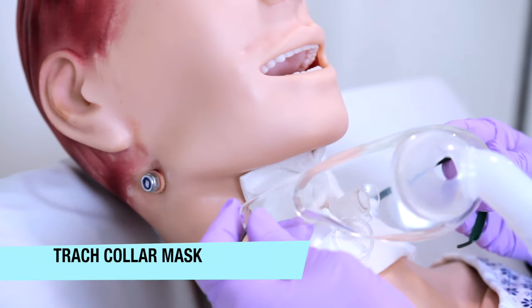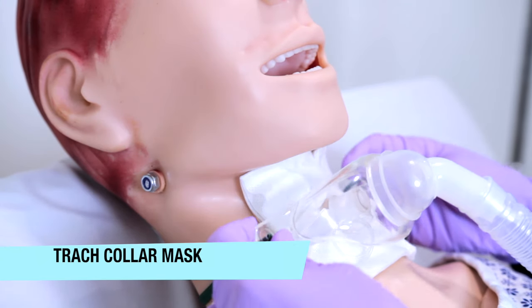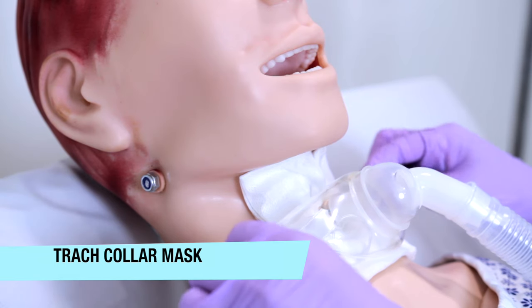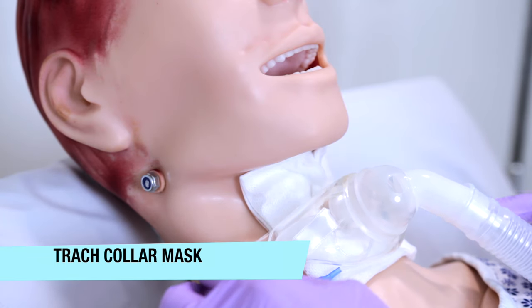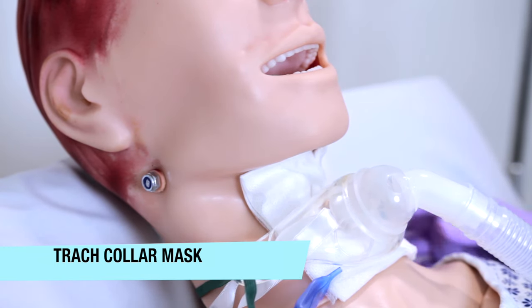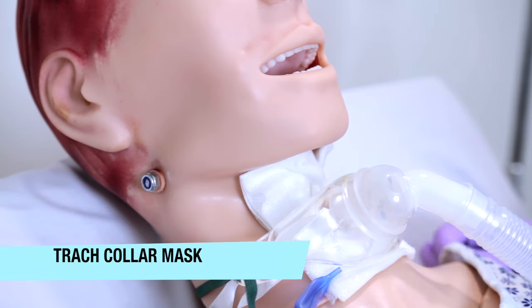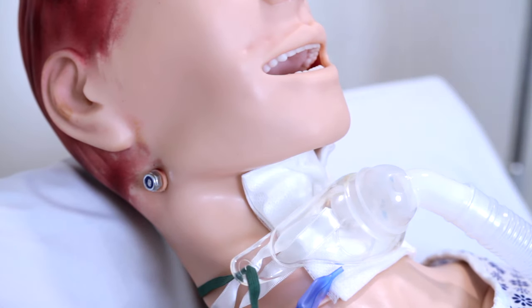An advantage to this source of oxygen delivery is it offers high humidity. Some reasons for use are for your patients that need relief of an airway obstruction, or it is great for weaning patients off the ventilator.